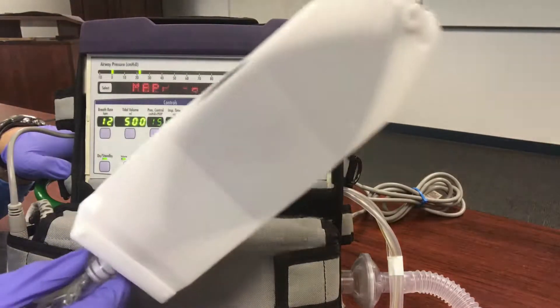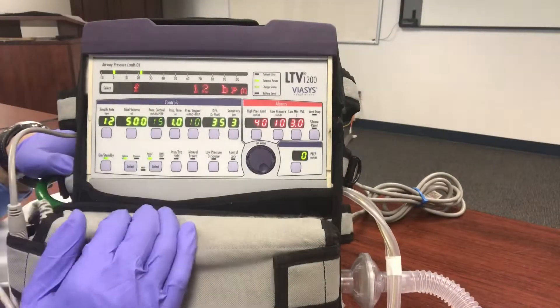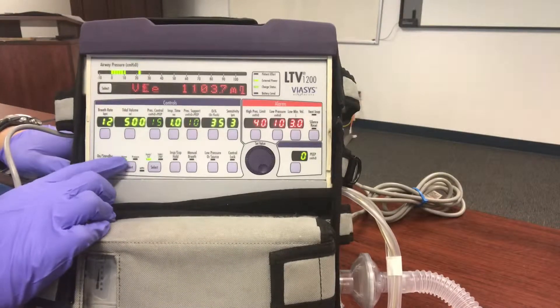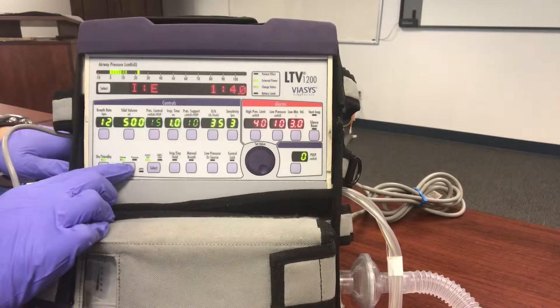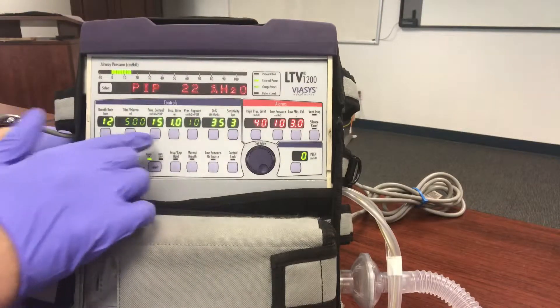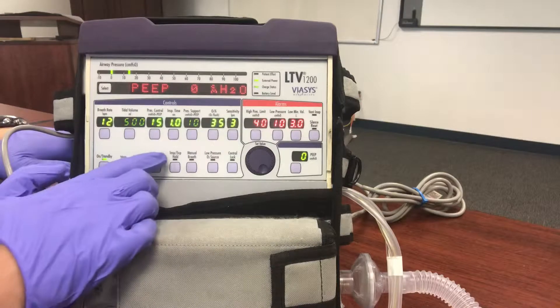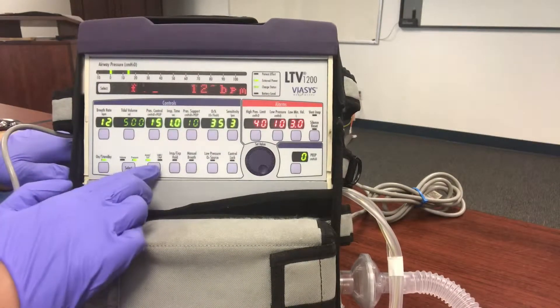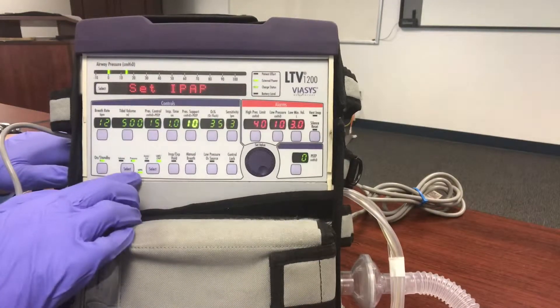This is not what you want to put our patient on. It's good to have the test lung going — this is where you make your parameter changes to NPPV. We have a volume mode, so we're going to switch to pressure mode. Hit it until it changes to pressure control, then go down to the spontaneous mode NPPV. Select again, and now we're in NPPV.